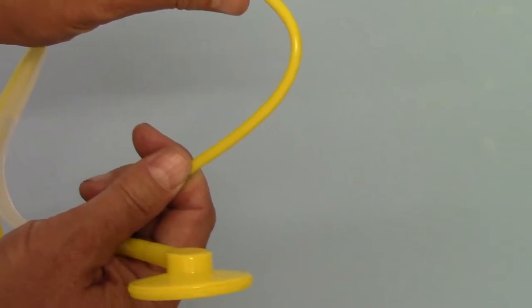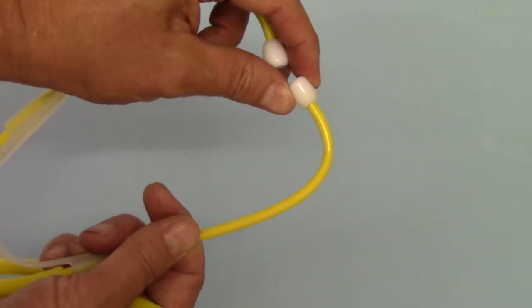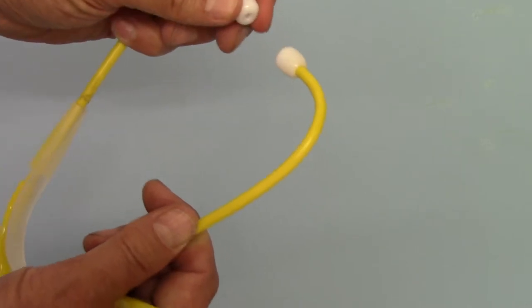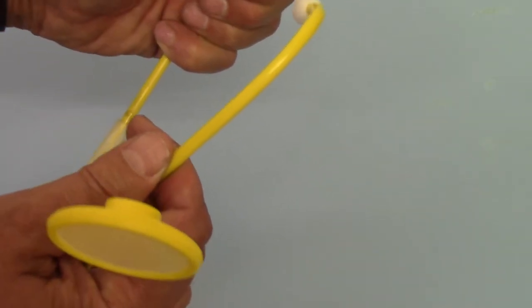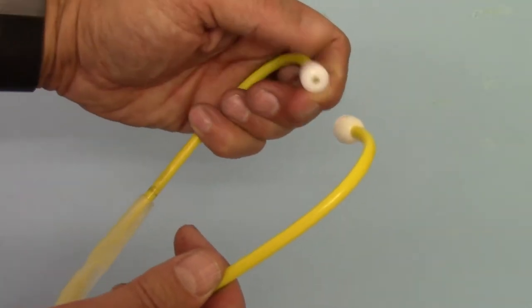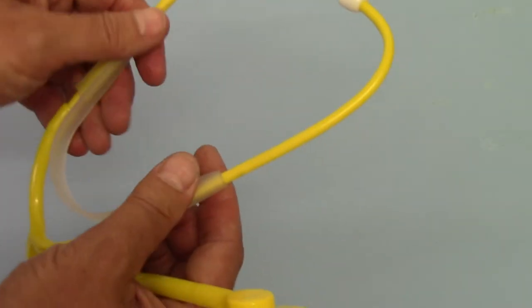There is a bit of give in this. They're not the very hard vinyl tips that can cause discomfort. If I just show you that in compression, they squeeze quite well, so they're quite comfortable to use.